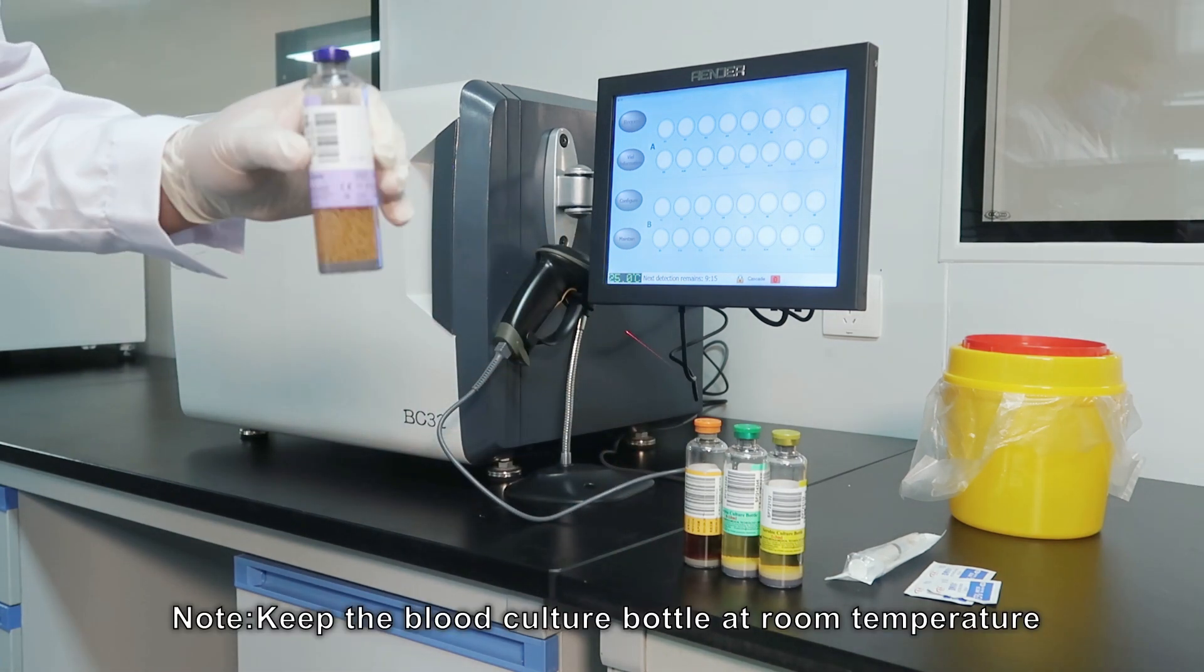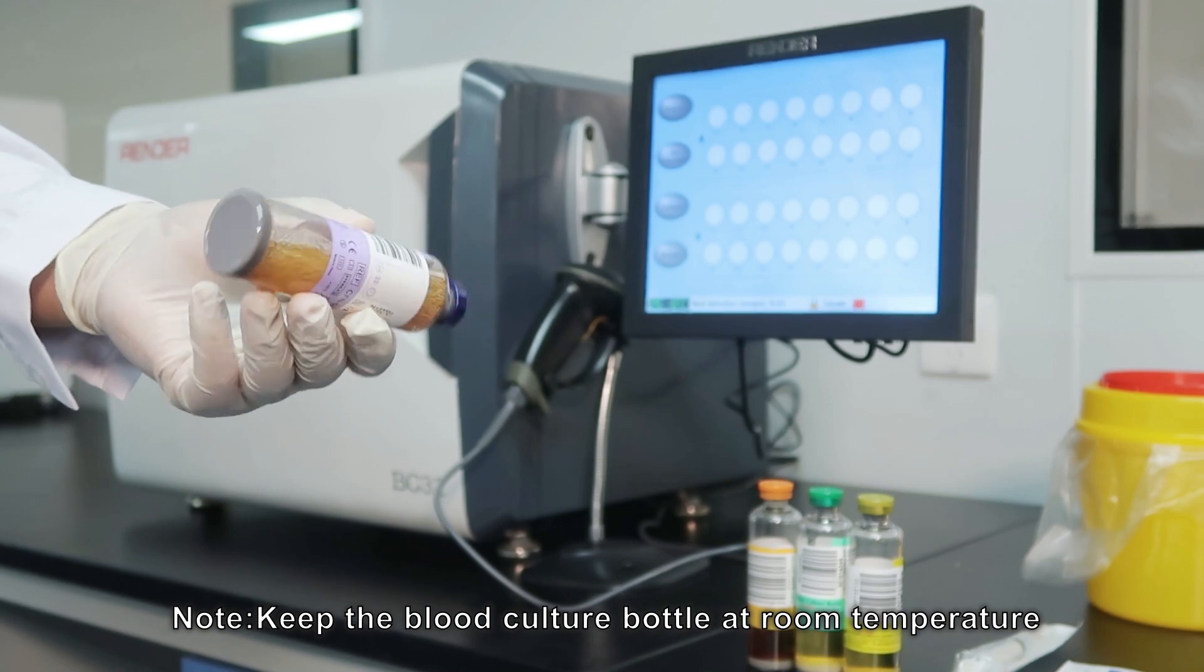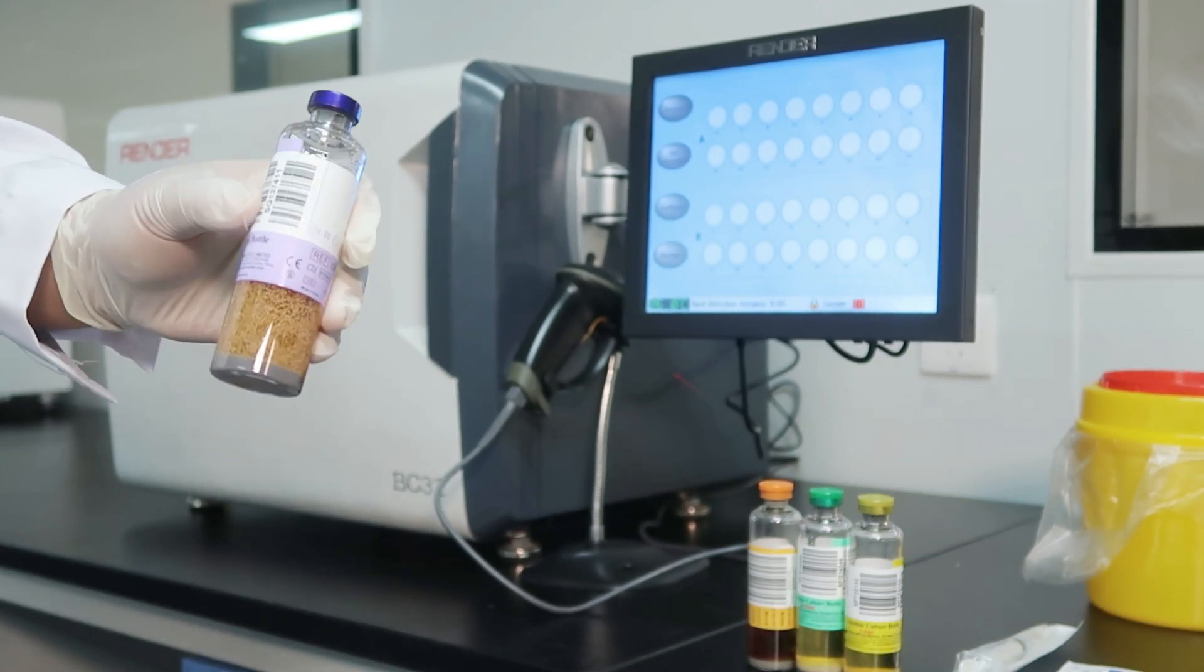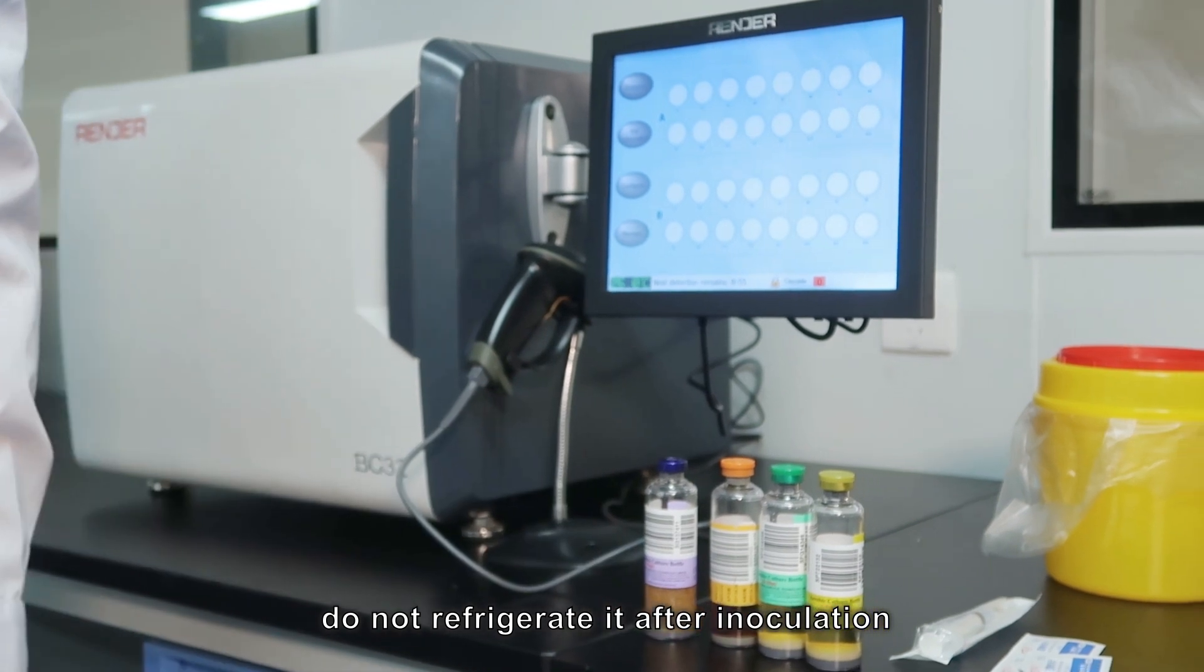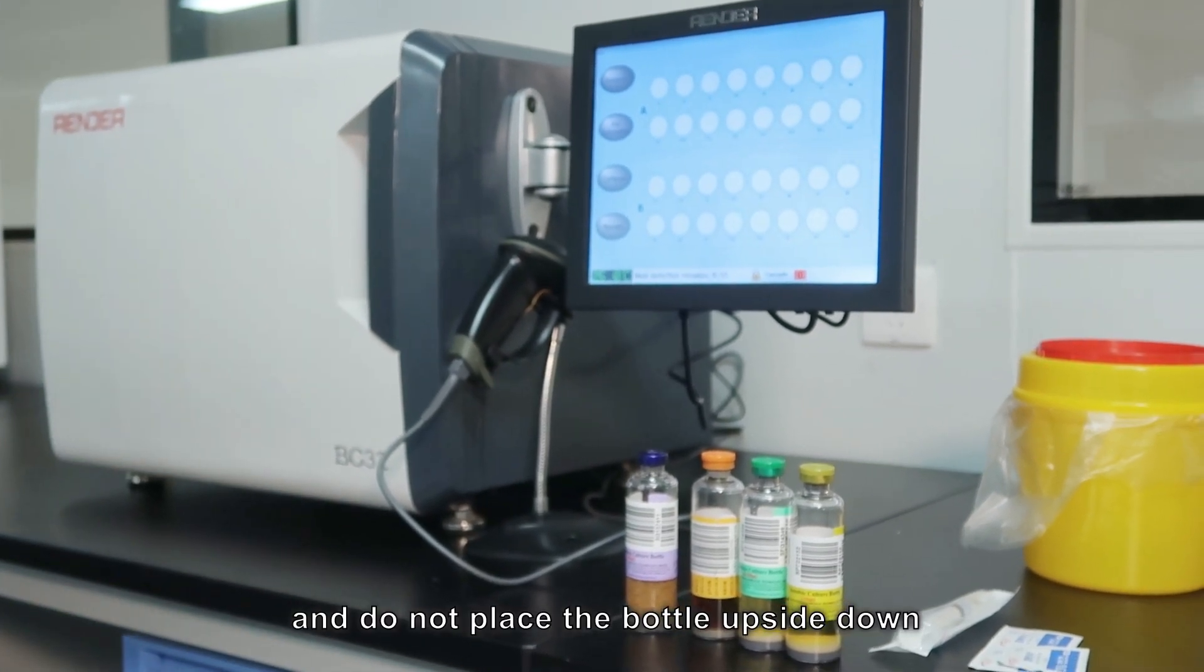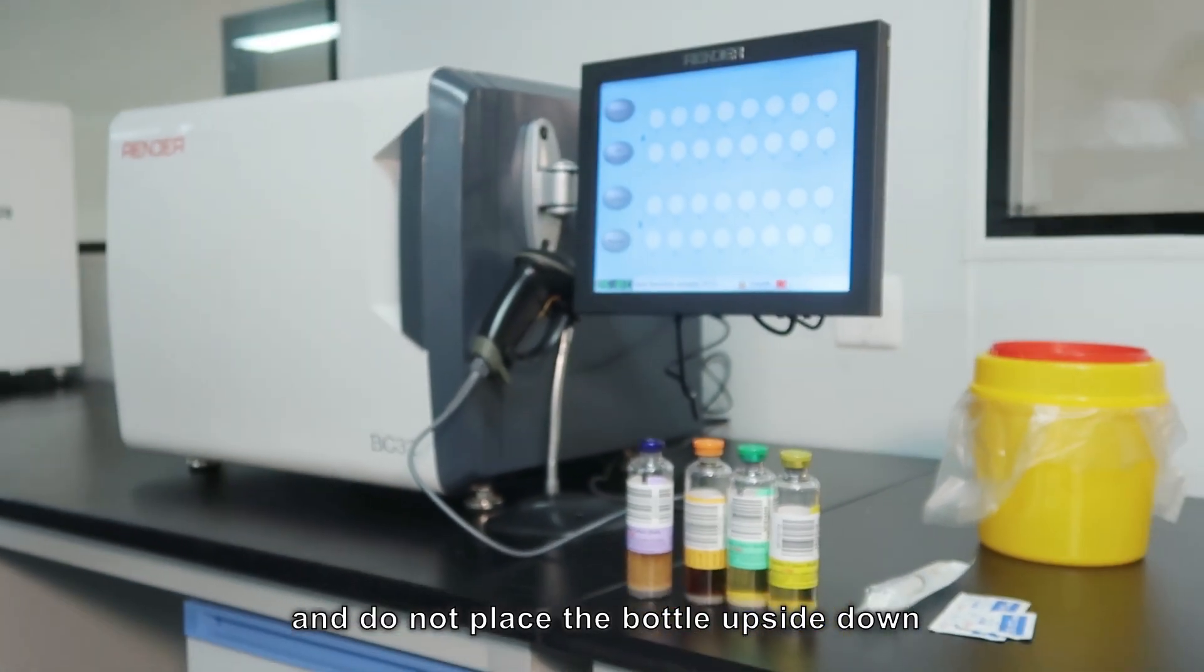Note: keep the blood culture bottle at room temperature. Do not refrigerate it after inoculation. And do not place the bottle upside down.